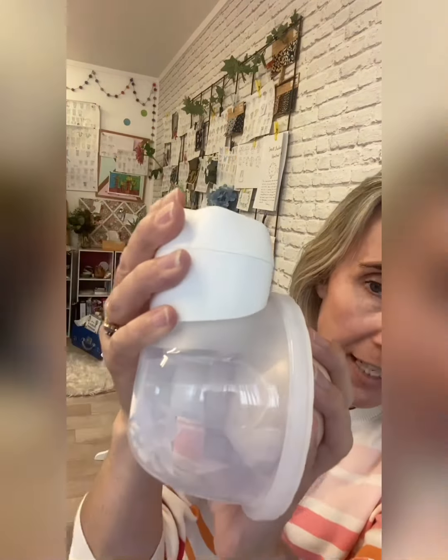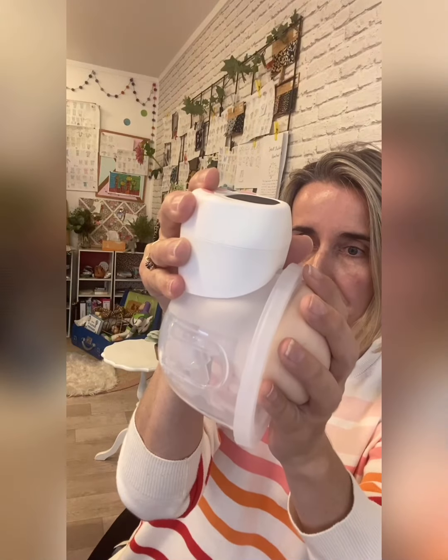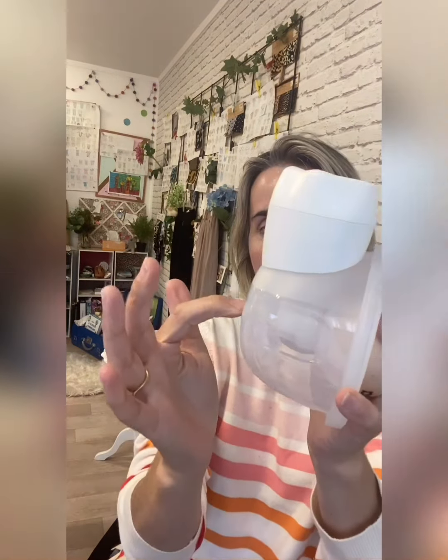You can't really see that showing up because of the valve in there. The milk comes out through the valve and it fits into the bottom section of the pump. When you've finished, keep it upright — you don't want to be too rough or vigorous with it — and when it's full, you just tip the milk out through there into a storage container.